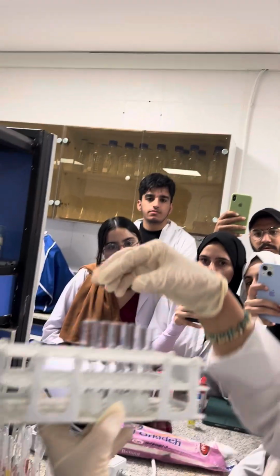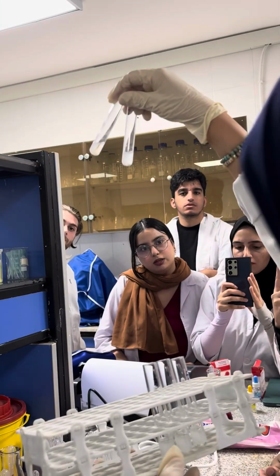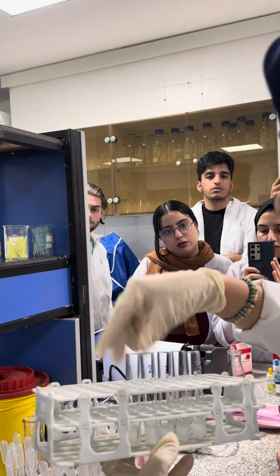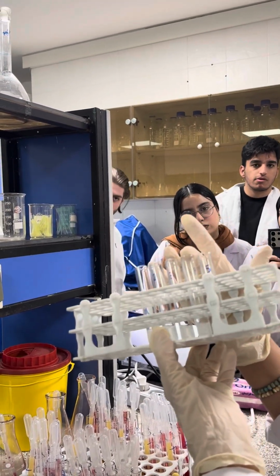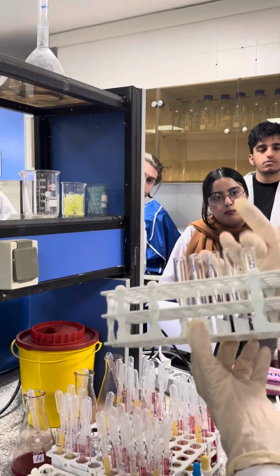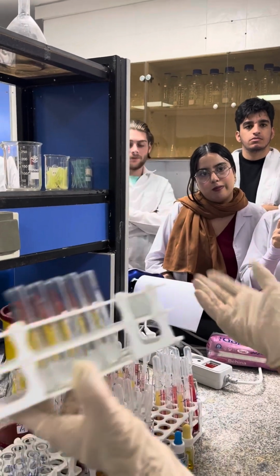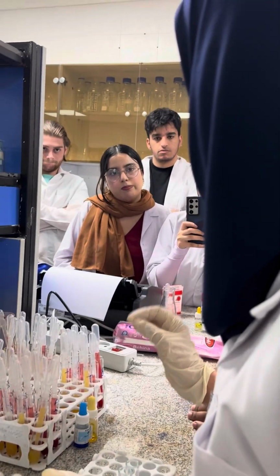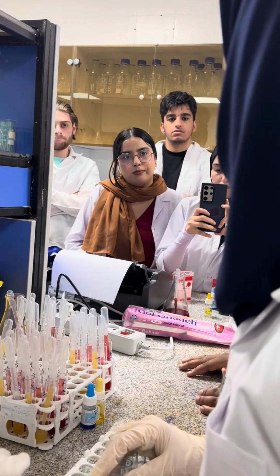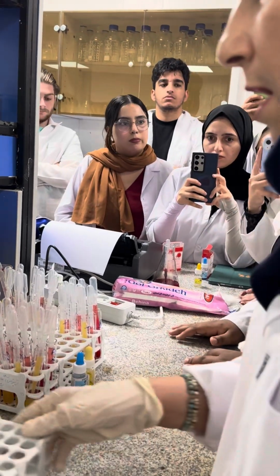So, what is the titer? The last tube that you see the agglutination. It is the second one. The titer is 20, 40, 80, 160, 320. So the titer is 40. Is it patient or healthy? Healthy. Forget about the endemic and non-endemic. Just report the titer, and after that you write for me on your paper: is he or she patient or healthy? Just forget about endemic and non-endemic.